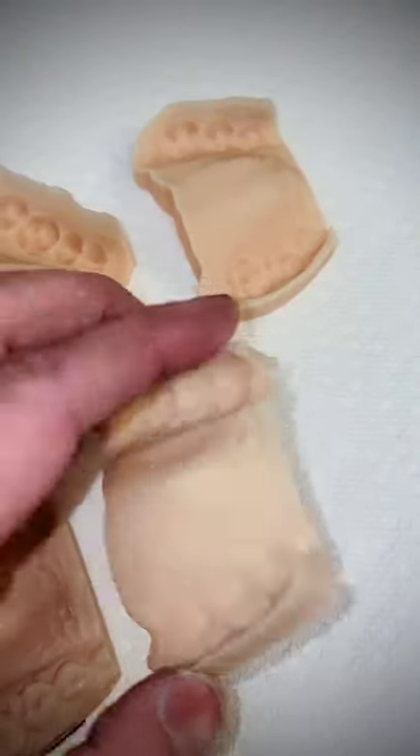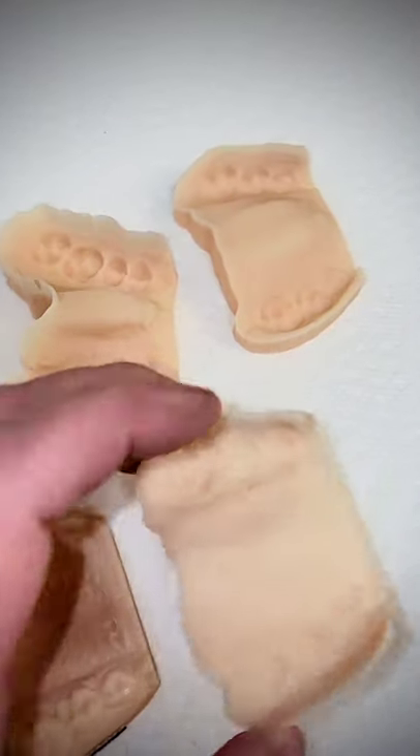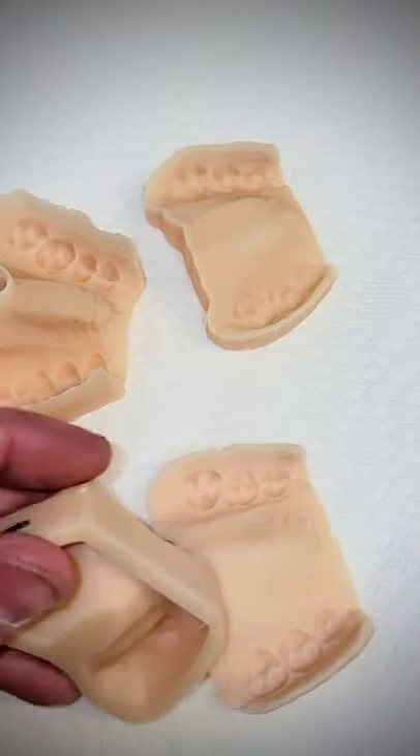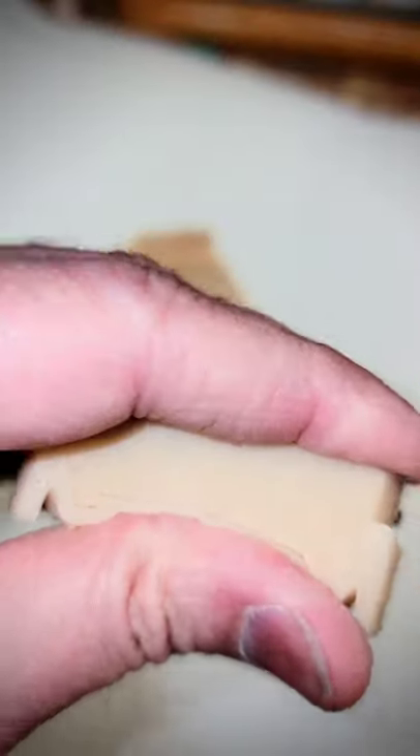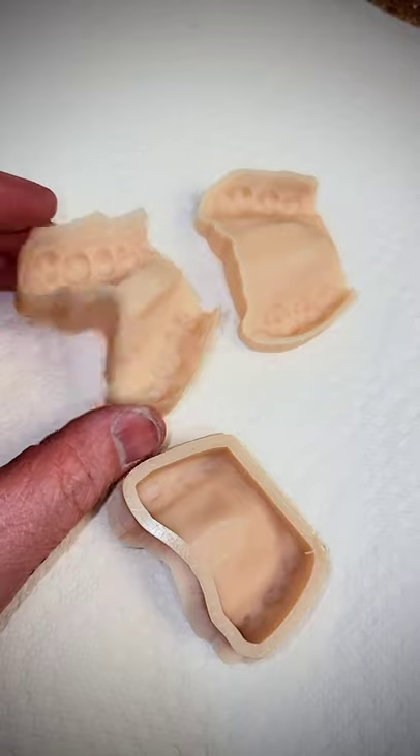Check this fit out, you'll love it. Just printed this model — here's the reverse image of it printed on my Envision 1. I'll go up and pour these reverses up in stone and away we go.